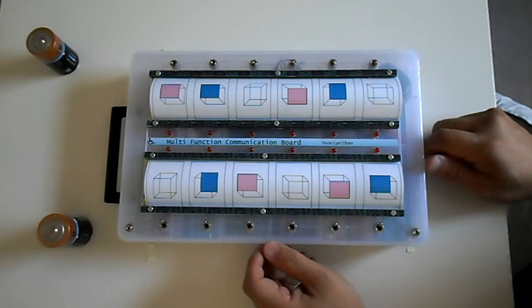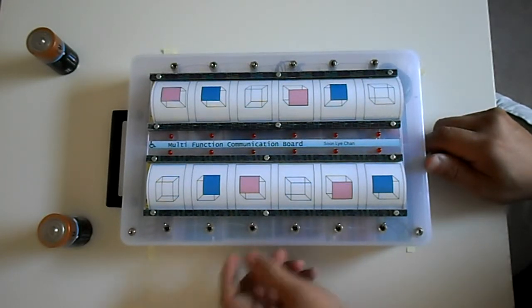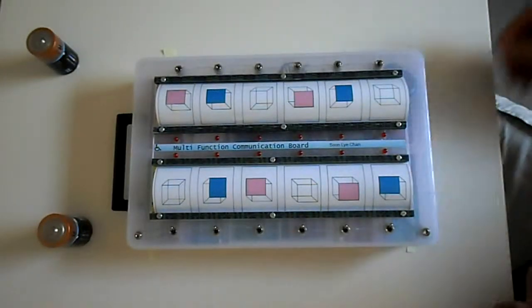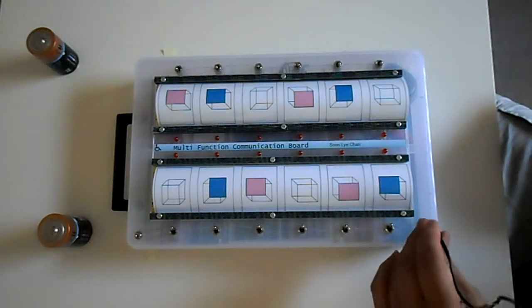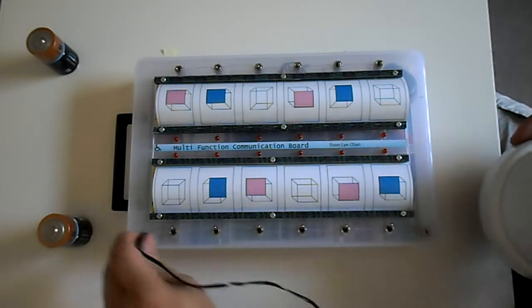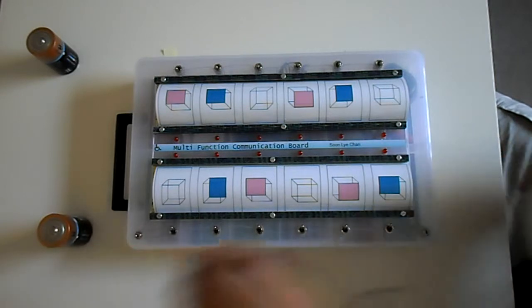So perfectly ideal for third world countries, where, as I said, batteries are not affordable. And so this device by itself will run without any batteries, with its own inbuilt charger. And last but not least, we can also obviously have a switch in here to say yes or no. Effectively, the second one is over here. So one could be yes, one could be no.